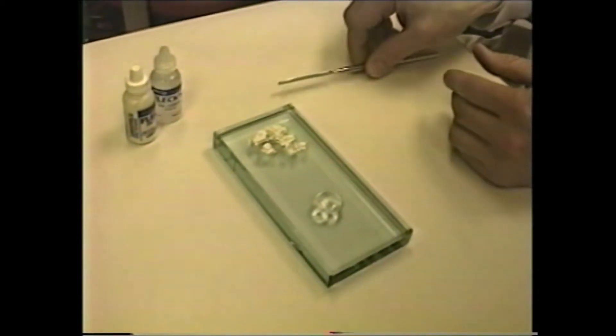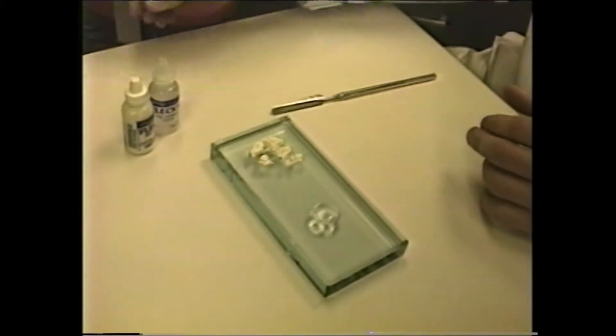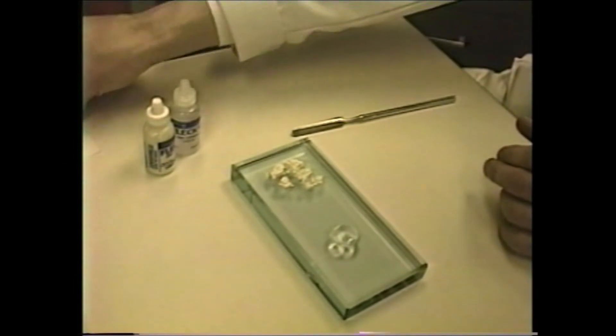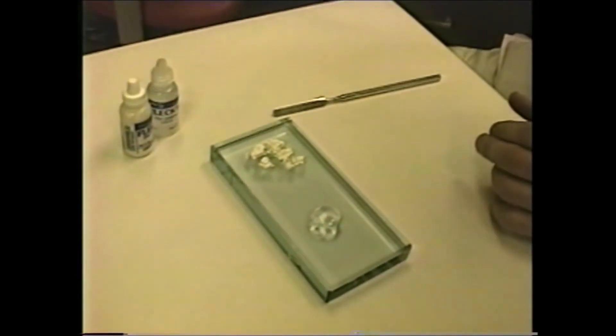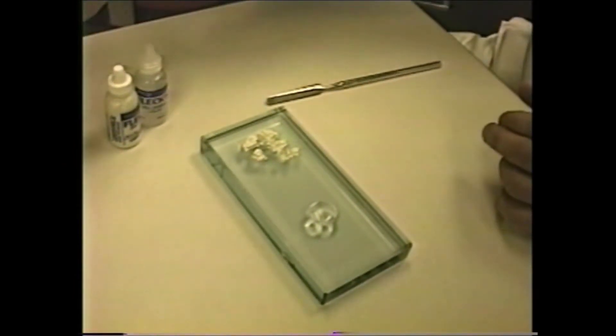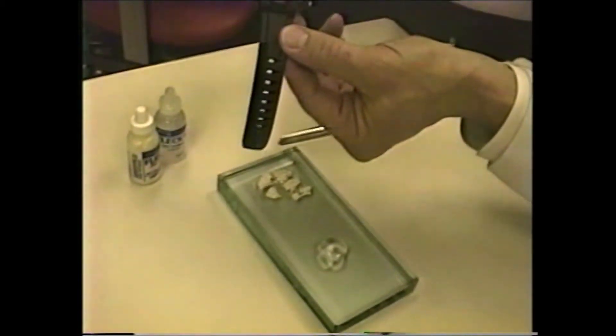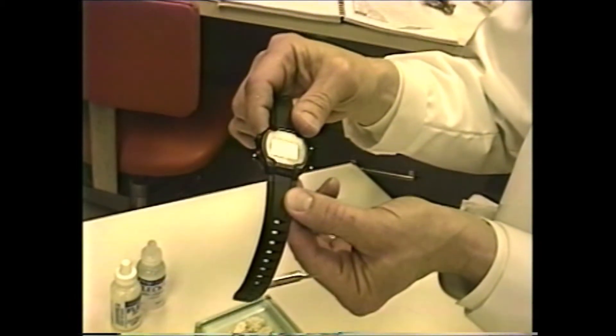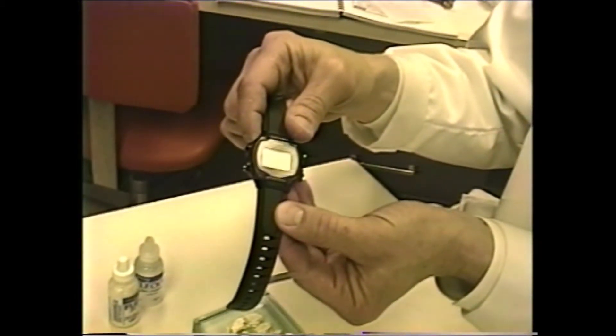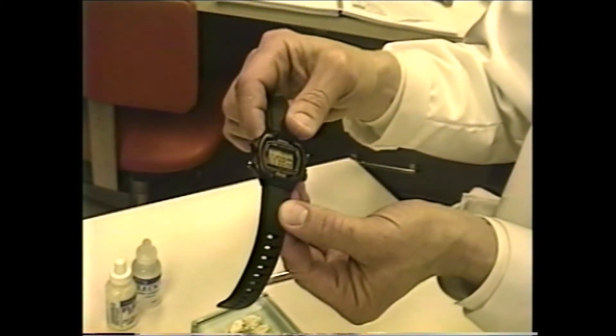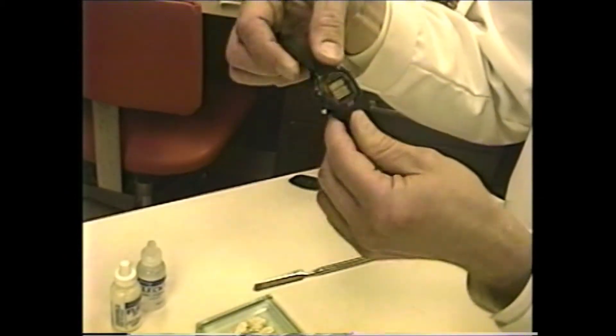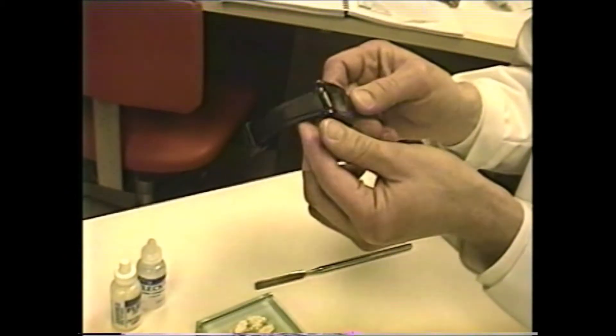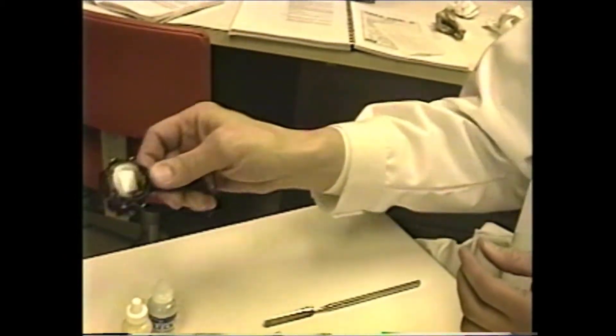Our next step is to begin mixing. You'll want to review the times of mixing. One handy thing to start with is using a stopwatch, because you'll note that there are fifteen-second intervals of mixing, and then it goes to twenty seconds, and finally thirty-five seconds. So I'll use the stopwatch just to keep track.